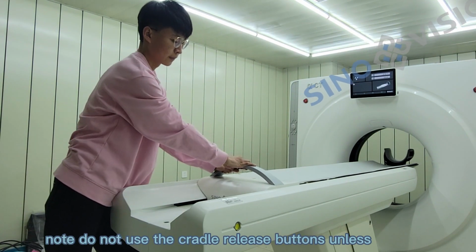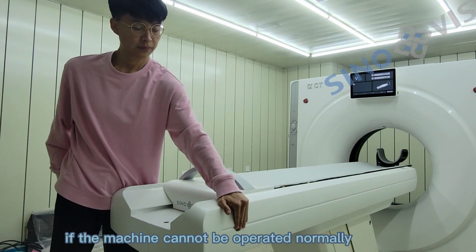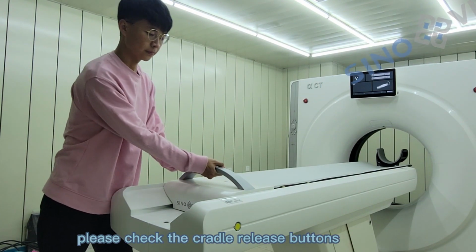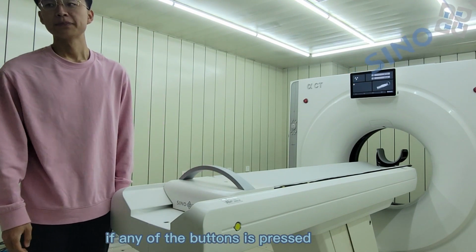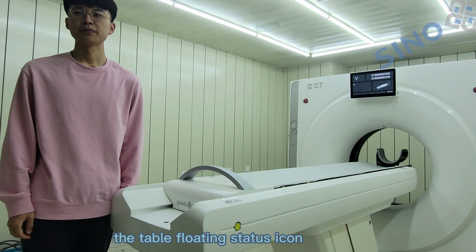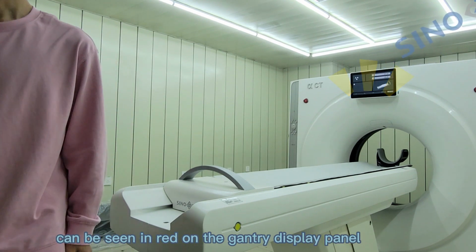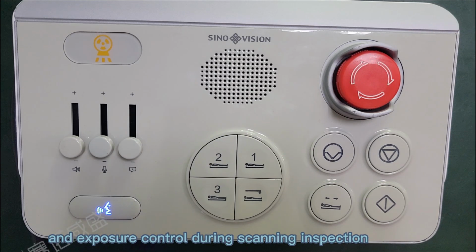Note: do not use the cradle release buttons unless under special circumstances. If the machine cannot be operated normally after the startup, please check the cradle release buttons first for errors or omissions. If any of the buttons is pressed, the table floating status icon can be seen in red on the gantry display panel.